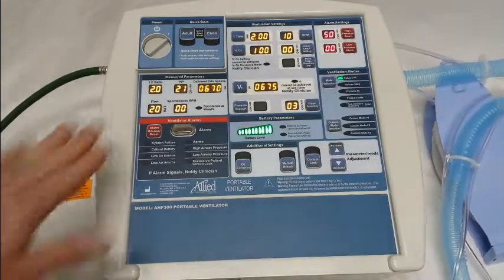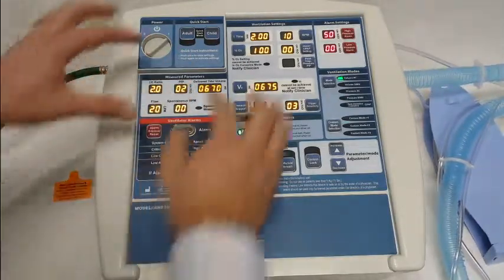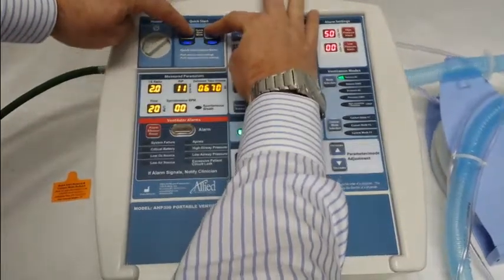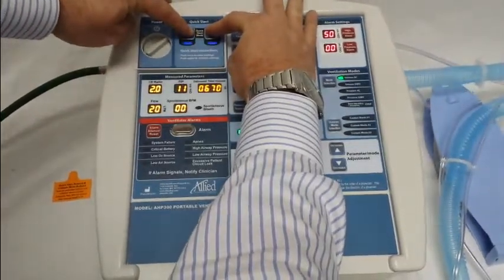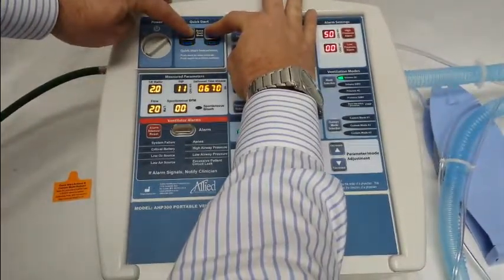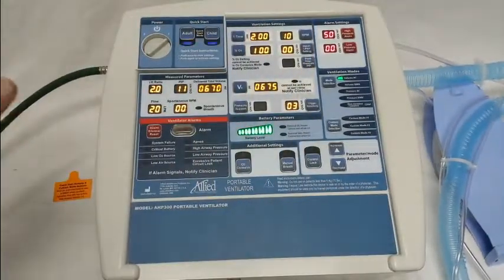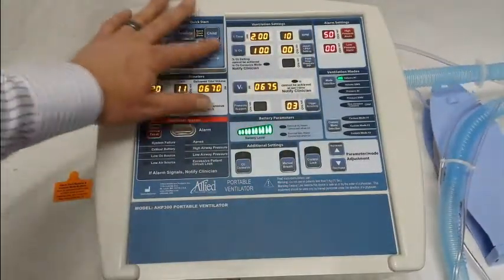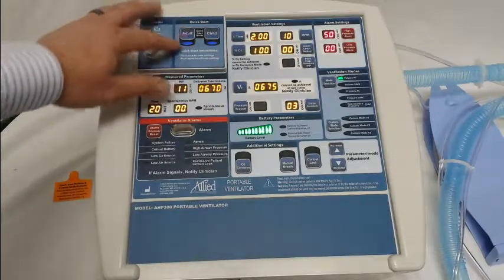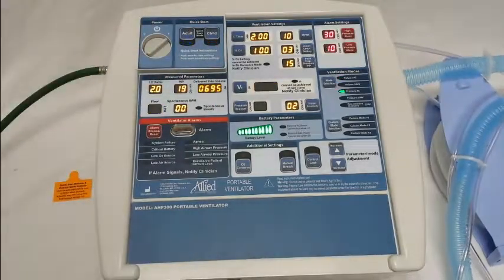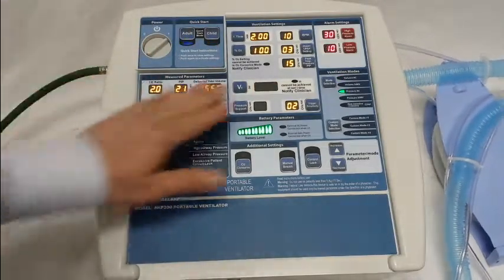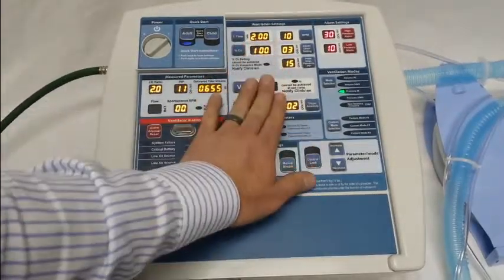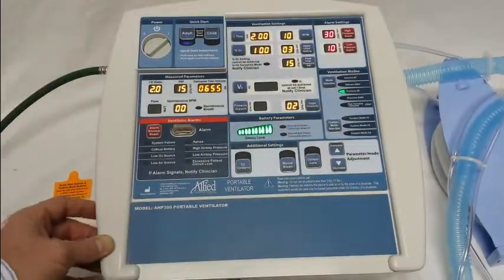To enter the programming, we're going to start with the quick start mode. You simply press and hold the adult and child quick start buttons at the same time. You'll notice a double beep, then you can let go. Then you'll press whichever mode you'd like to program first — let's do the adult. You'll notice there are settings in here. These are default settings listed in your manual.